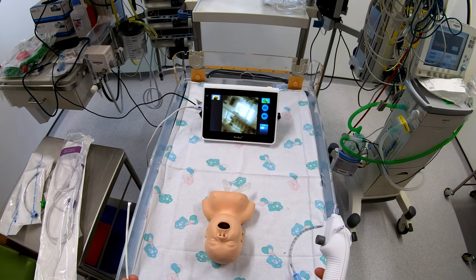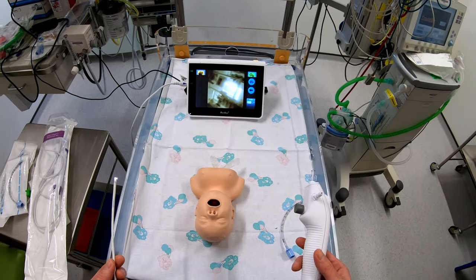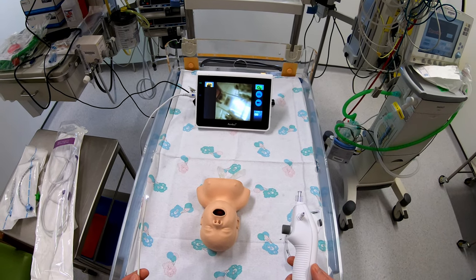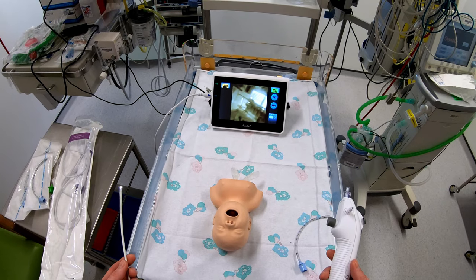But that's quite a cumbersome process to do, and given the fact that I have access to smaller reusable bronchoscopes that I can use for intubation, it made it hard to recommend using this for the majority of my patients who were going to need fibre optic intubation.